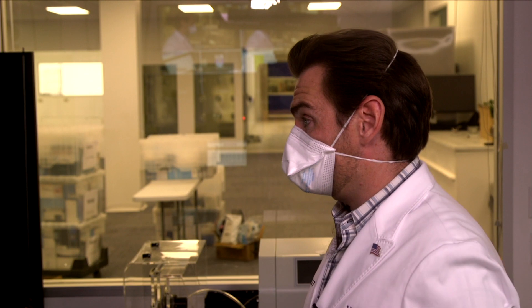It's not the journey, it's the destination — and we got there. You can see this style mask has that duckbill look to it. It's not going to be at the Met Gala, but when I'm on an airplane this is what I'm wearing. It's super breathable — you have this entire area to breathe in. When I was testing the fabric at 100 pascals I was testing a small part; this mask gives you way more fabric to breathe through, so it's even more breathable than the machine indicates. If I'm going to put it on and leave it on, this is one of the better styles.